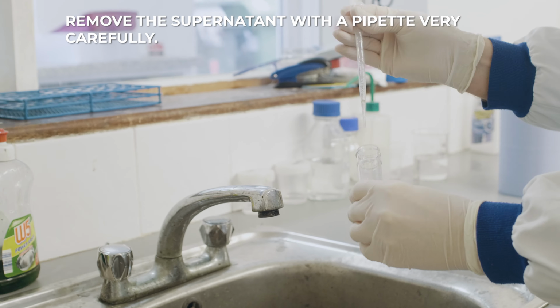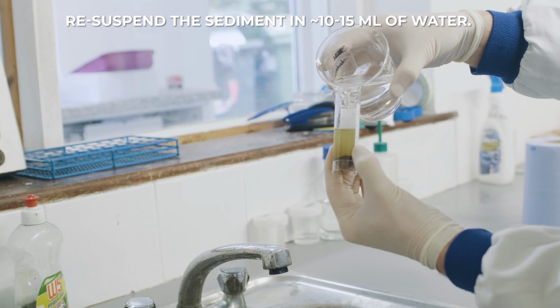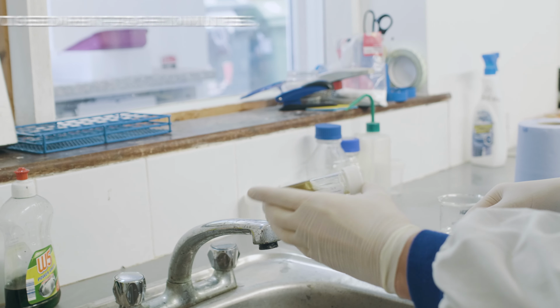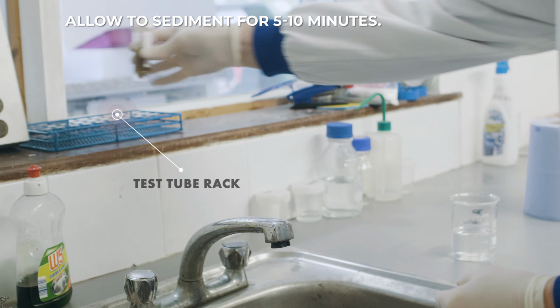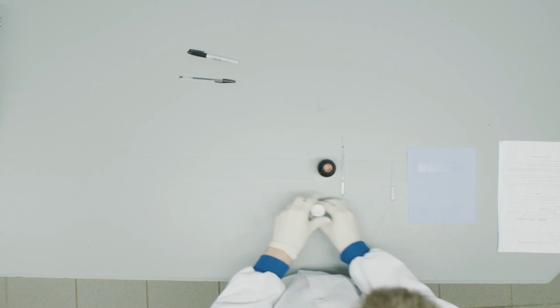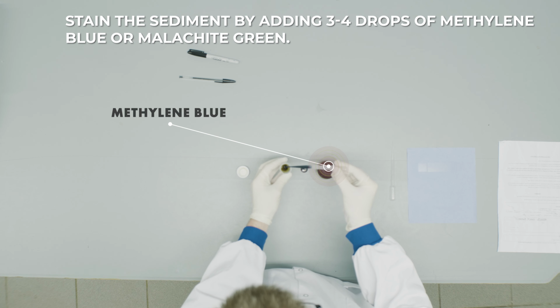Remove the supernatant with a pipette very carefully. Resuspend the sediment in 10 to 15 ml of water. Allow to sediment for 5 to 10 minutes. Discard the supernatant carefully. Stain the sediment by adding 3 to 4 drops of methylene blue or malachite green.